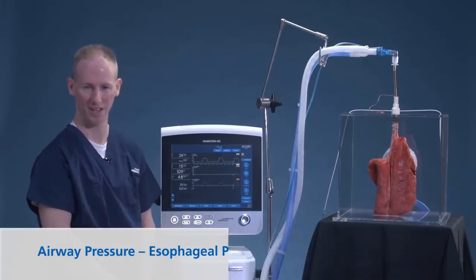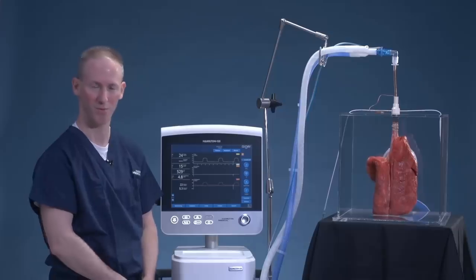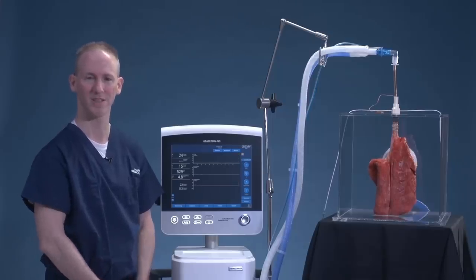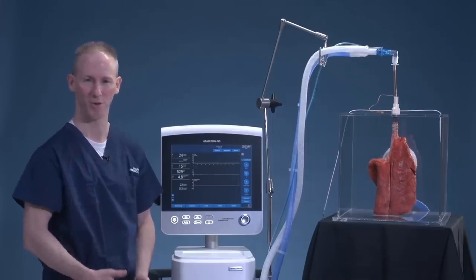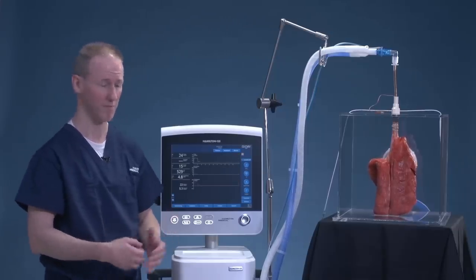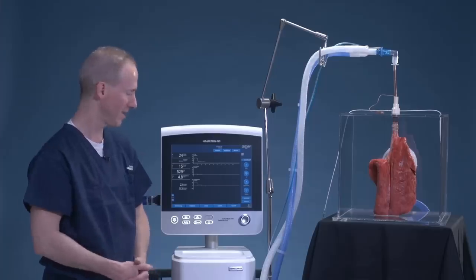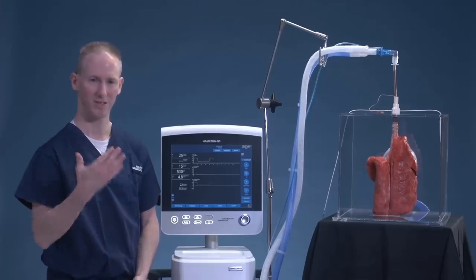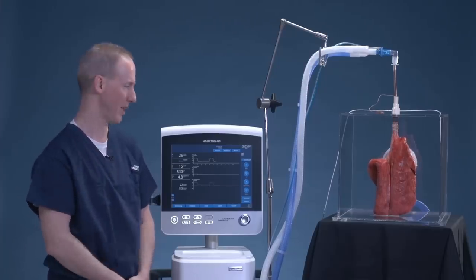Transpulmonary pressure at the end-expiratory phase is the true distending pressure of the lungs at end-expiratory phase, or transpulmonary PEEP. And in the inspiratory phase, it would be transpulmonary plateau.